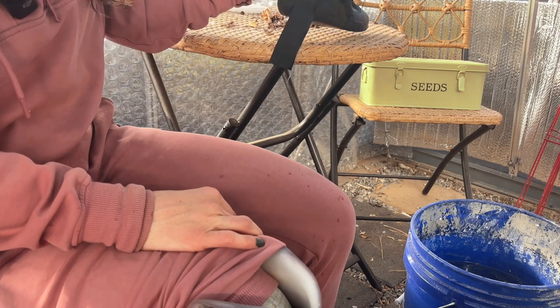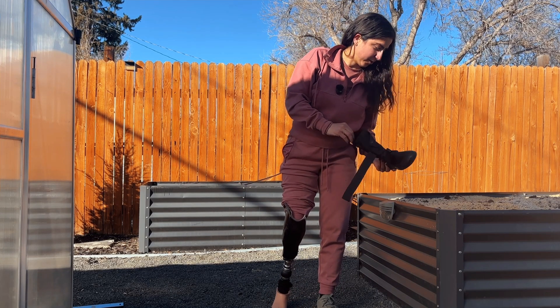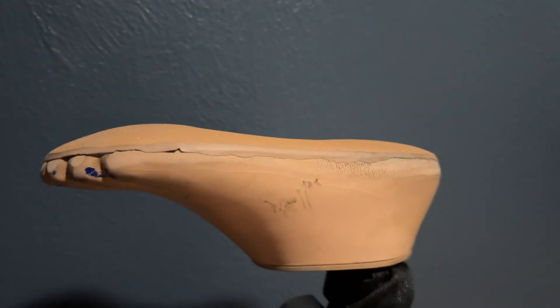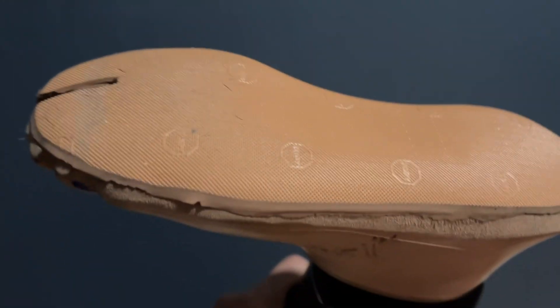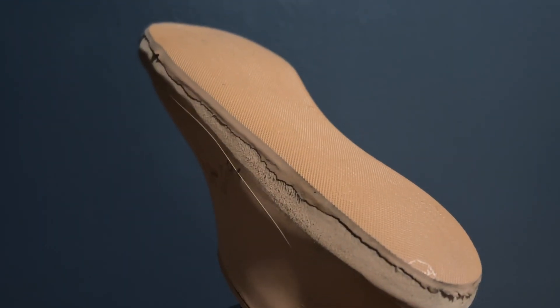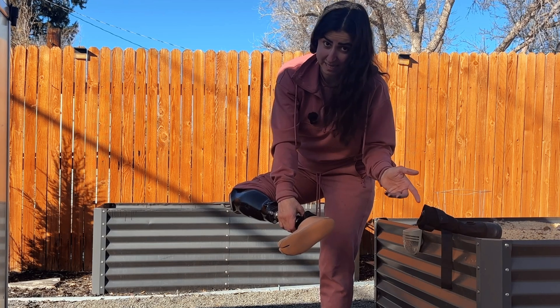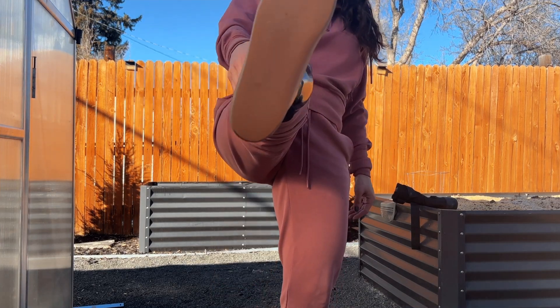Pretty nice. Pro Armor — you've done it. Would recommend. Also, fun little side note: my prosthetist added a layer of material to the bottom of my foot shell, and it's grippy, because I told him I walk around barefoot all the time on my hardwood floors inside and that's kind of slippery. He just added this on and it is really nice. In all my years of being an amputee, I've never had that material on the bottom of my foot, and now I never want to not have it.